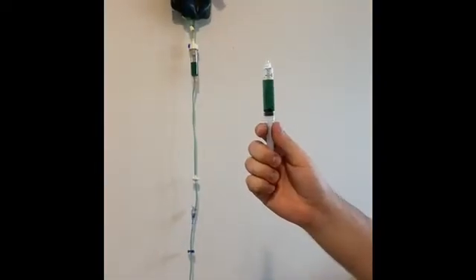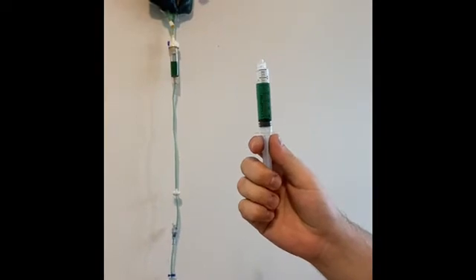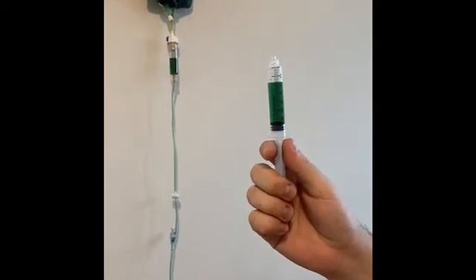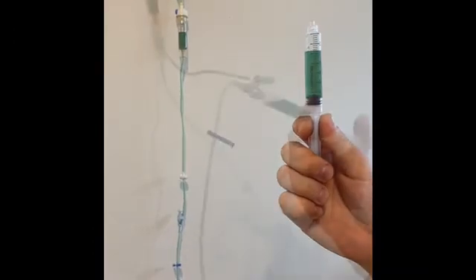For demonstration purposes, we have a syringe filled with 1cc of air. We're going to inject the air at the top of the syringe so that it moves into the patient line first, and we'll follow the air all the way down through the trap.